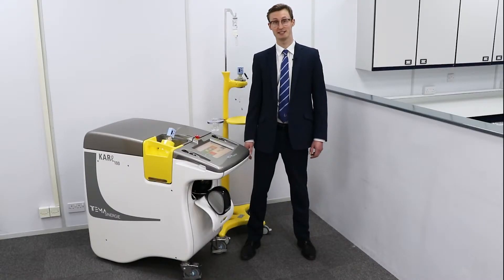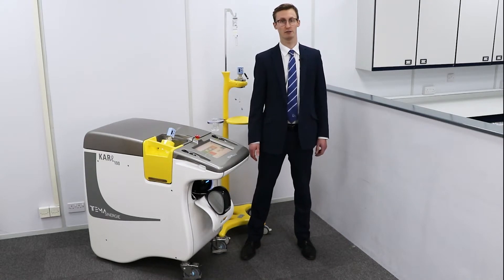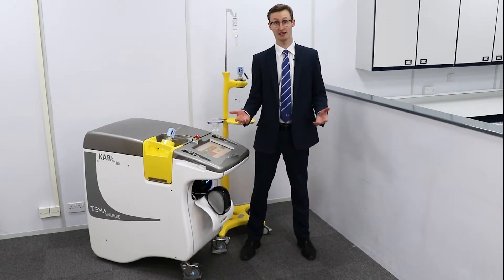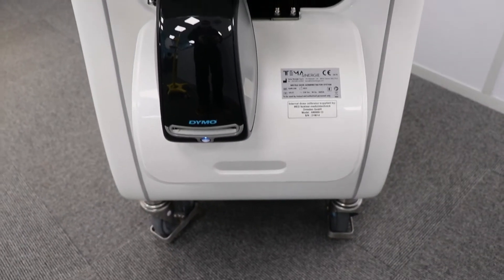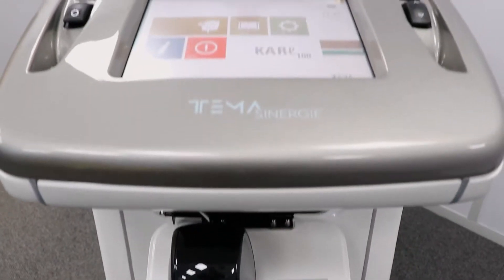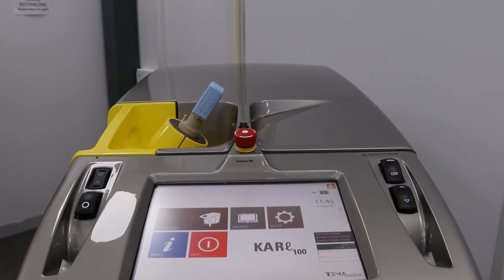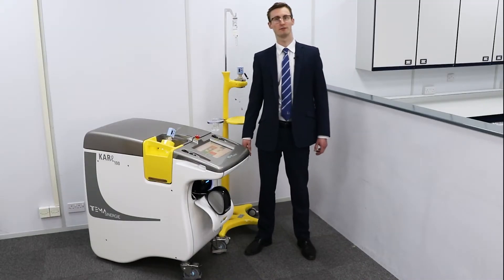Used for both the dispensing and injection of a wide range of radiotracers such as F18 and Gallium-68, the system provides a safe and user-friendly experience for both operators and patients. Let's have a closer look at some of the features and benefits.